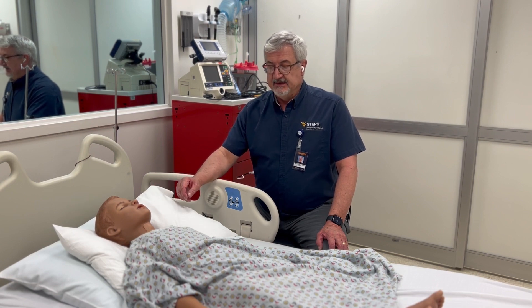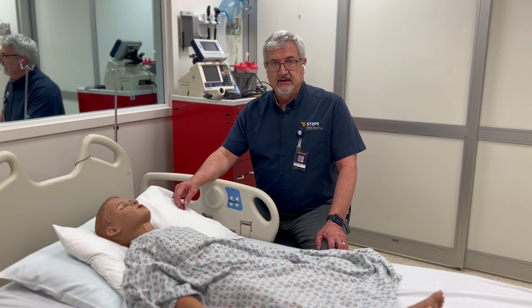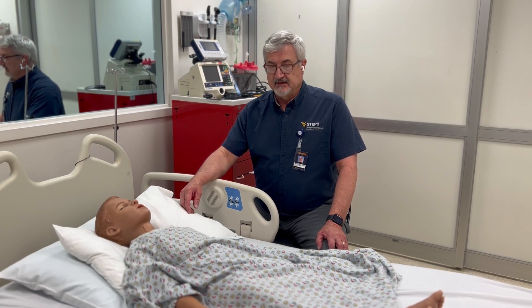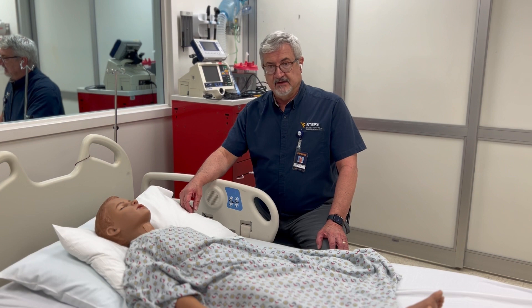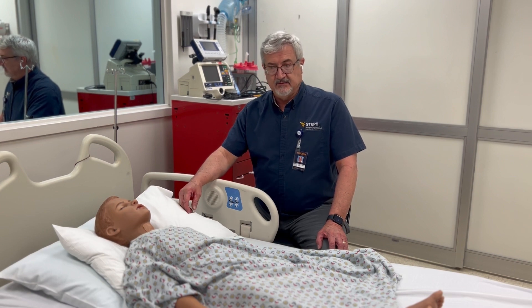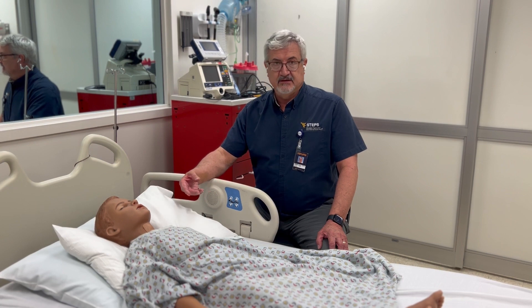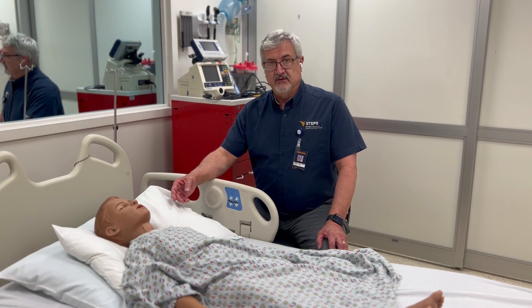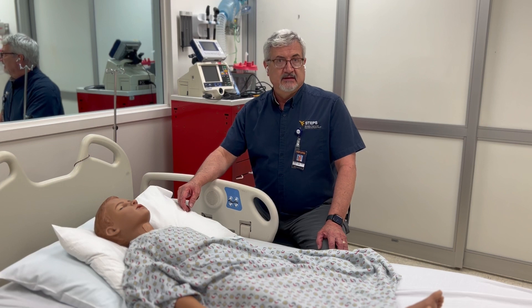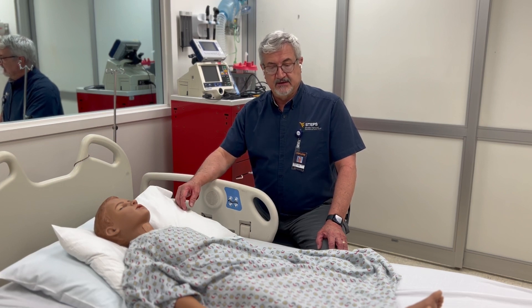these guys have the ability to have pulses from head to toe, breath sounds, heart sounds, they blink their eyes, they move their mouth, and you can also do procedures on them. You can intubate their trachea, you can start IVs, you can perform CPR, and they respond as a human would respond in similar situations.